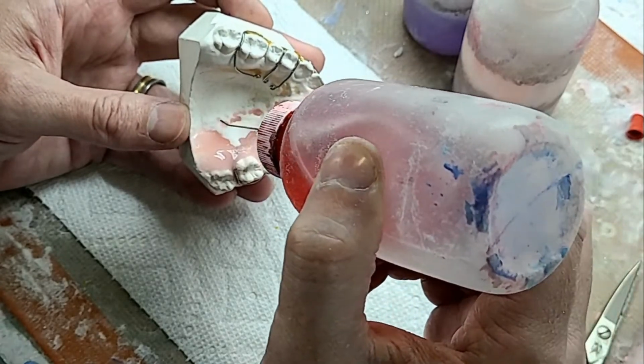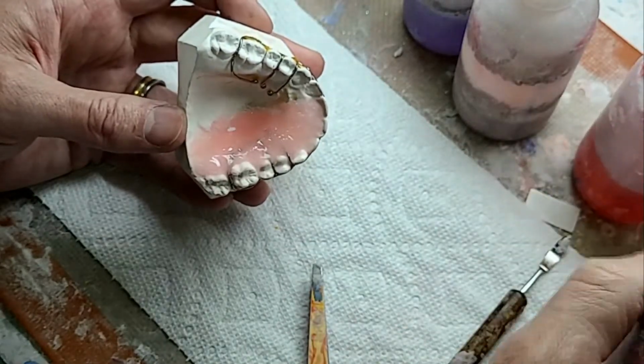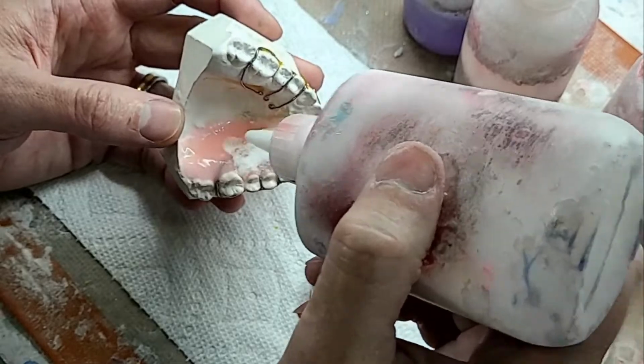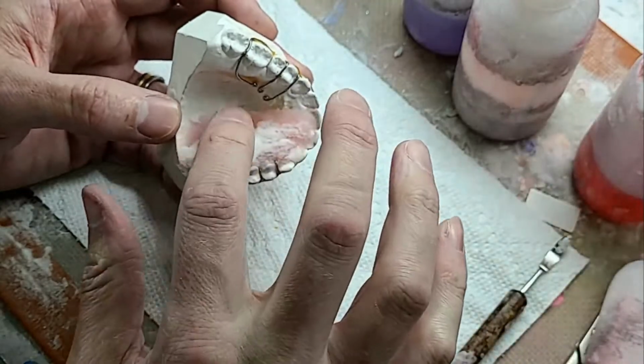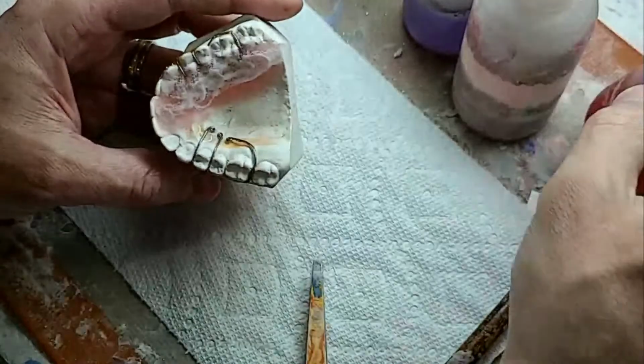I'm having the hardest time making the full palette. All right, I got this part down. I'm about to just fill in the full palette part later. I'm just doing the normal.